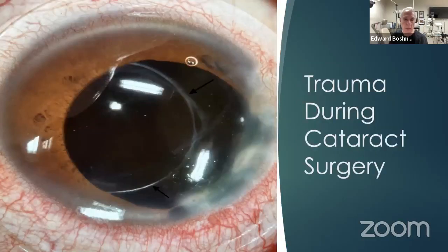Here is another eye. This patient was taking medication for restless leg syndrome. And during cataract surgery, the patient's body and leg shook violently. It took several technicians to hold him down. All of this while the cataract surgeon was inside the eye. So you can see part of the iris is ripped away, and you can see the IOL there. And in any case, the patient's doing really well with this, put a scleral lens. You can see the outline of the scleral lens in the top left. You can see the outline, top right also.